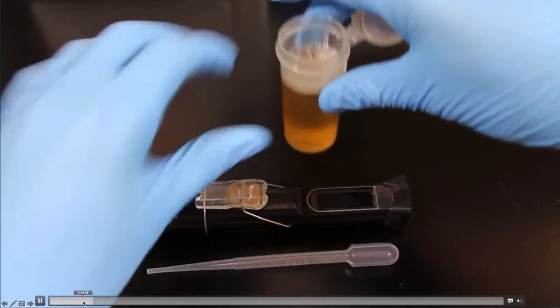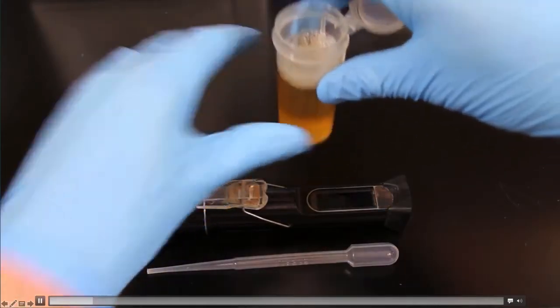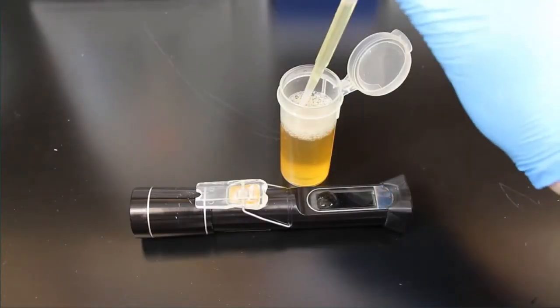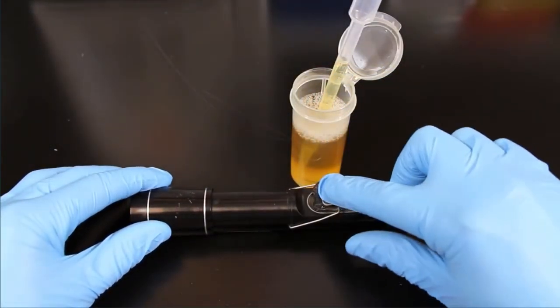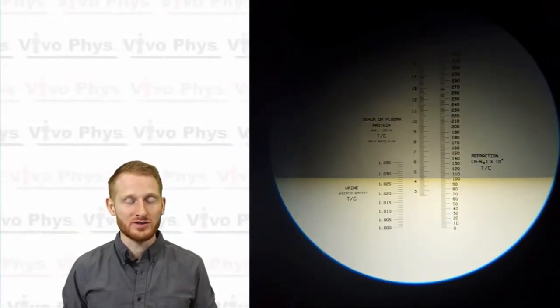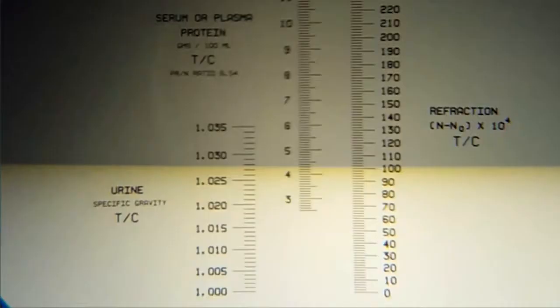Using a transfer pipette, put 2 to 3 drops of urine into the small circular opening underneath the glass of the refractometer. Make sure the urine gets onto that hole, then close the lid so the urine spreads across the glass on top of the refractometer. Once that happens, take the refractometer, pull it up to your eye like a telescope, and walk underneath a bright overhead light. The light shines through the liquid to make it easy to see the specific gravity reading.